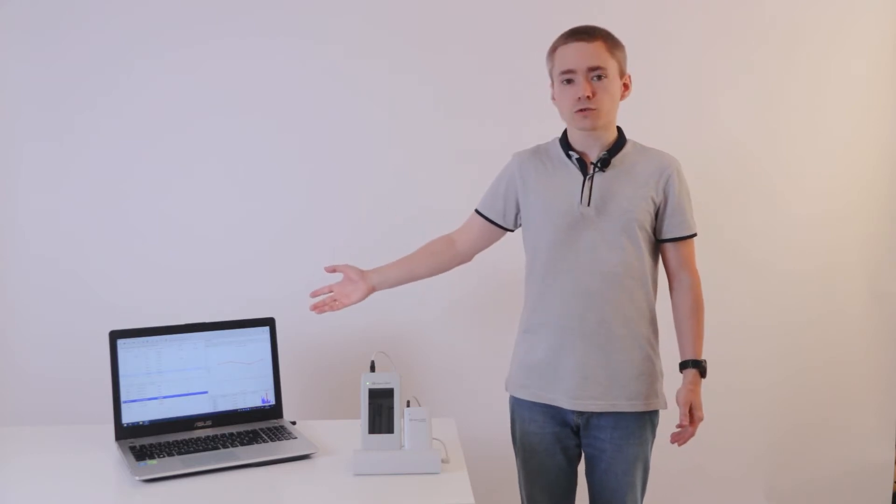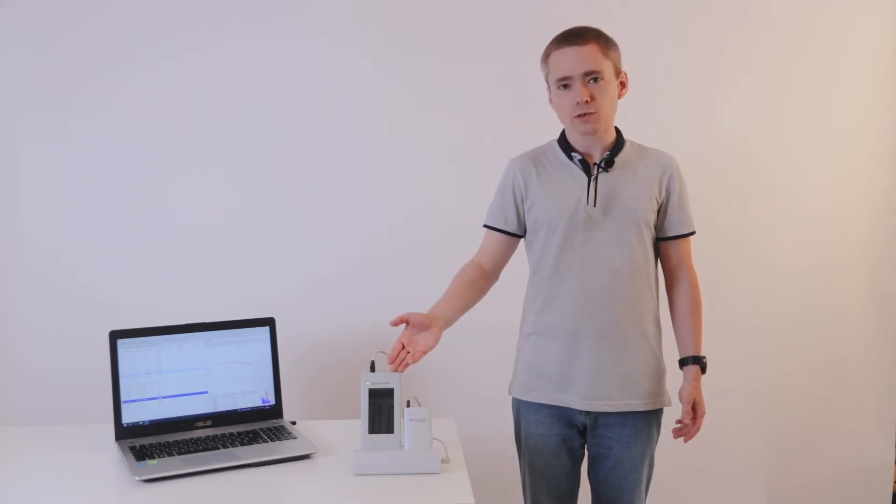Hello, my name is Michael Saganov. I am audiology product manager of the NeuroSoft company. Today we will talk about NeuroAudioScreenManager software, which is used to manage the database of patients and test results recorded with AudioSmart and A-Screen devices.